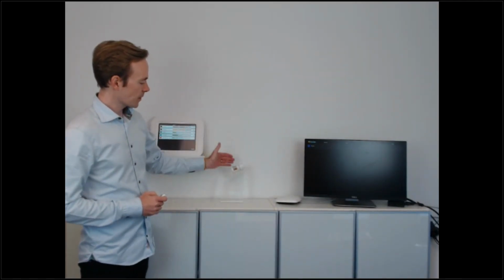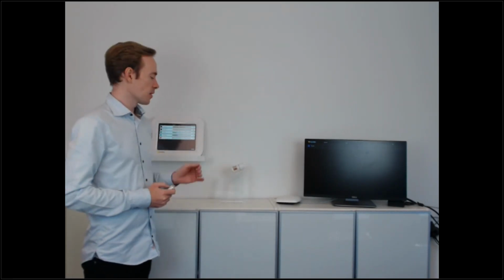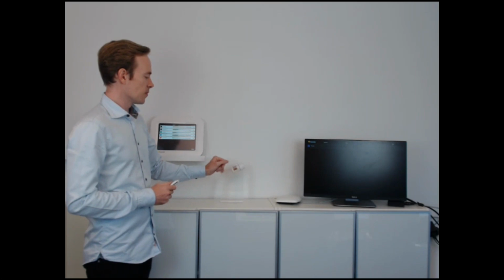So that said, I would like to show you all how this all comes together. So in the room, we have this radioactive source. It's an americium-241 source. And for all the physicists in the room, this is primarily an alpha emitter. These don't pick up alpha, but it also emits a certain amount of gamma rays at 59.5 keV, which is very similar to the X-rays you would see in an interventional X-ray room.